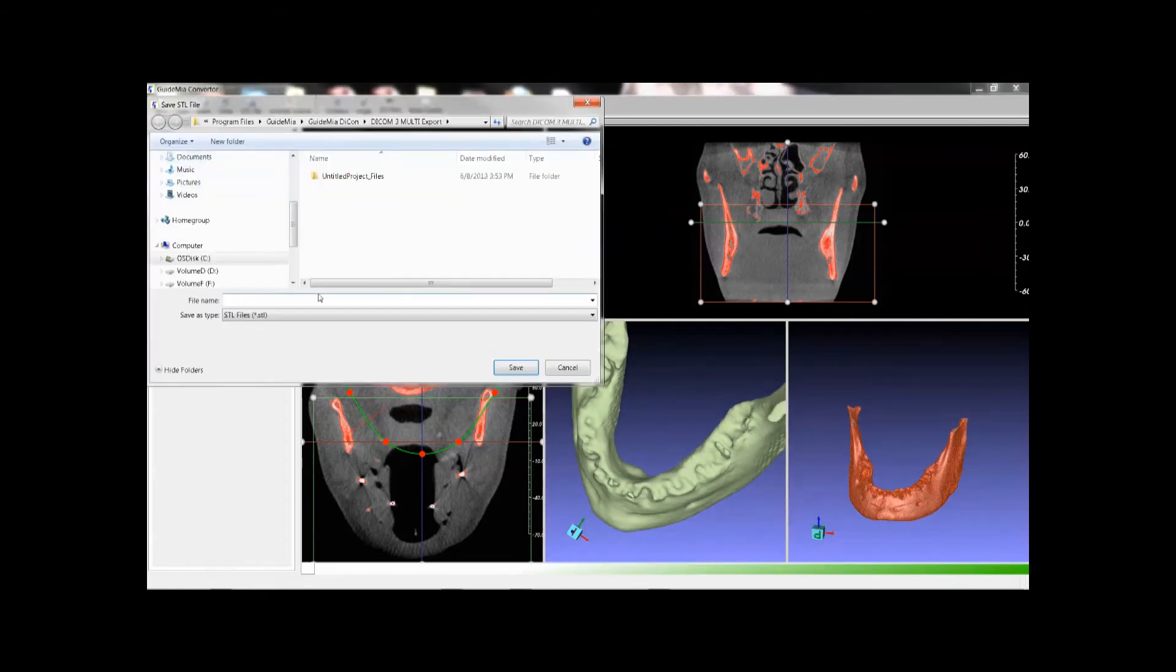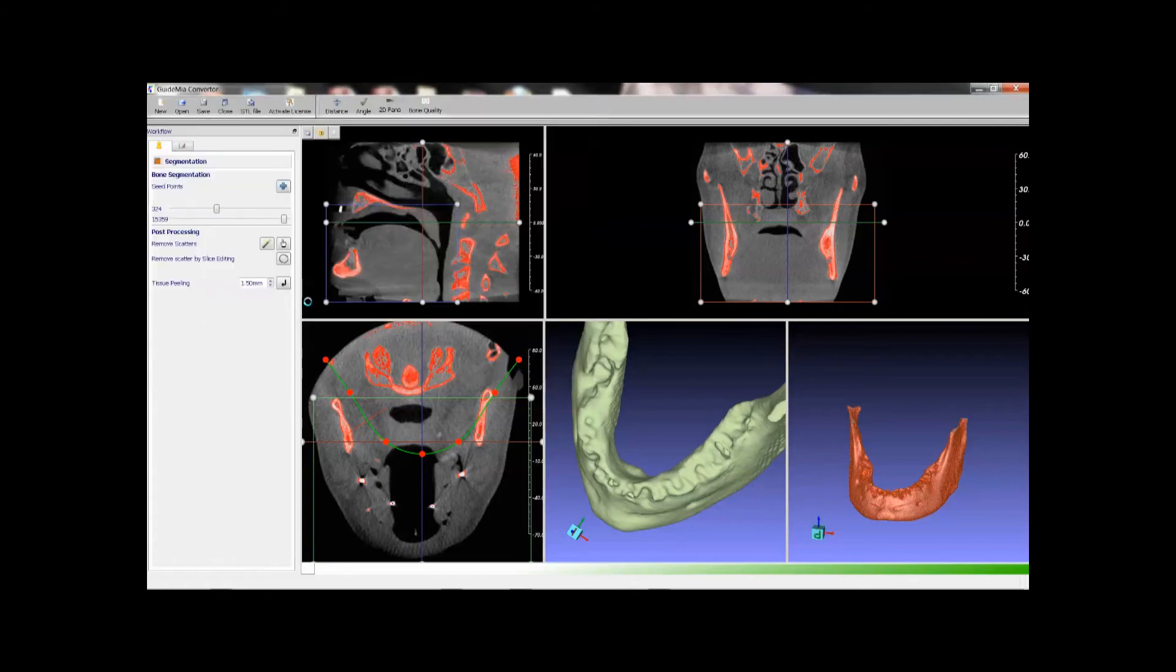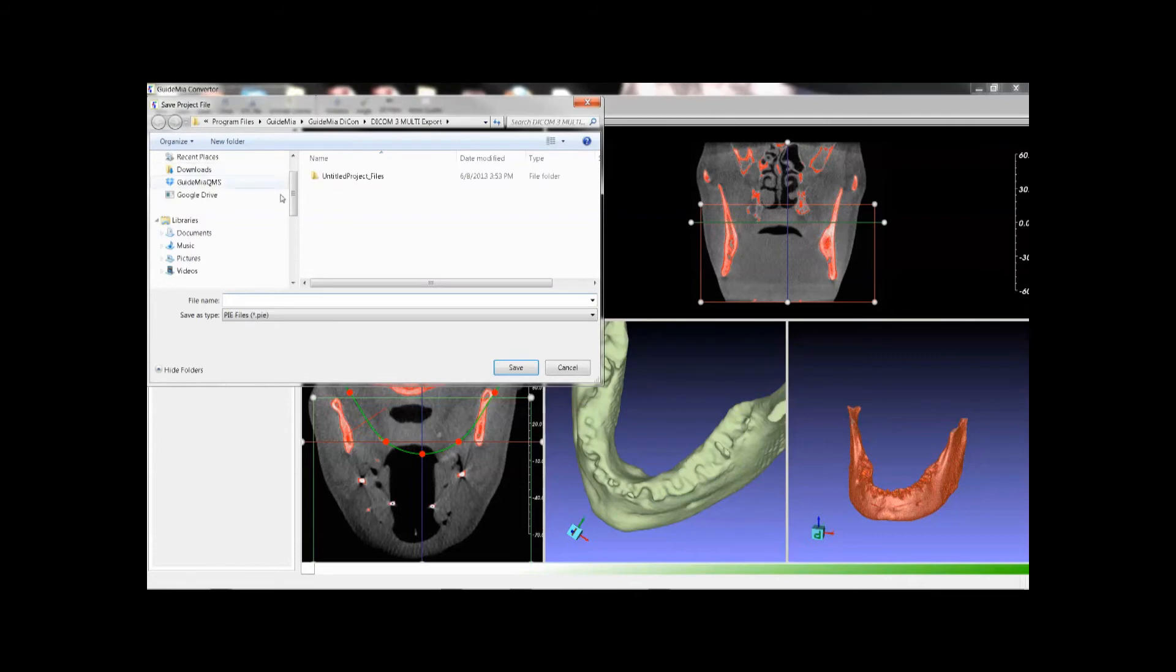Then we have a model with the holes filled. Export the STL file. Save the case as a project and then close it.